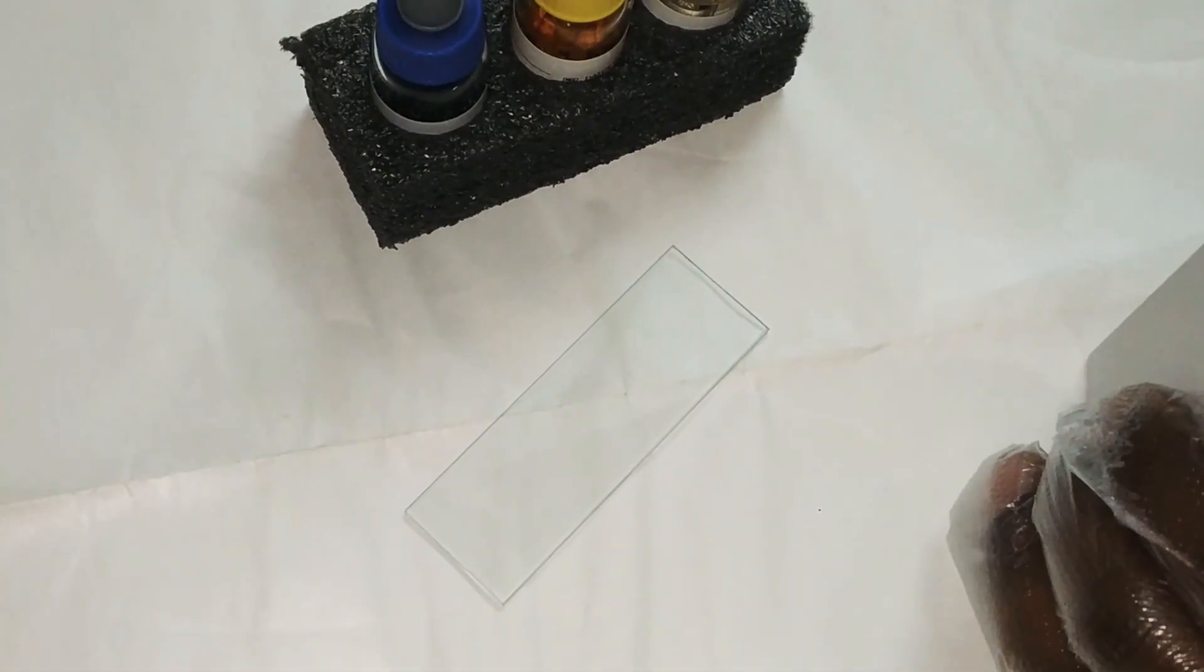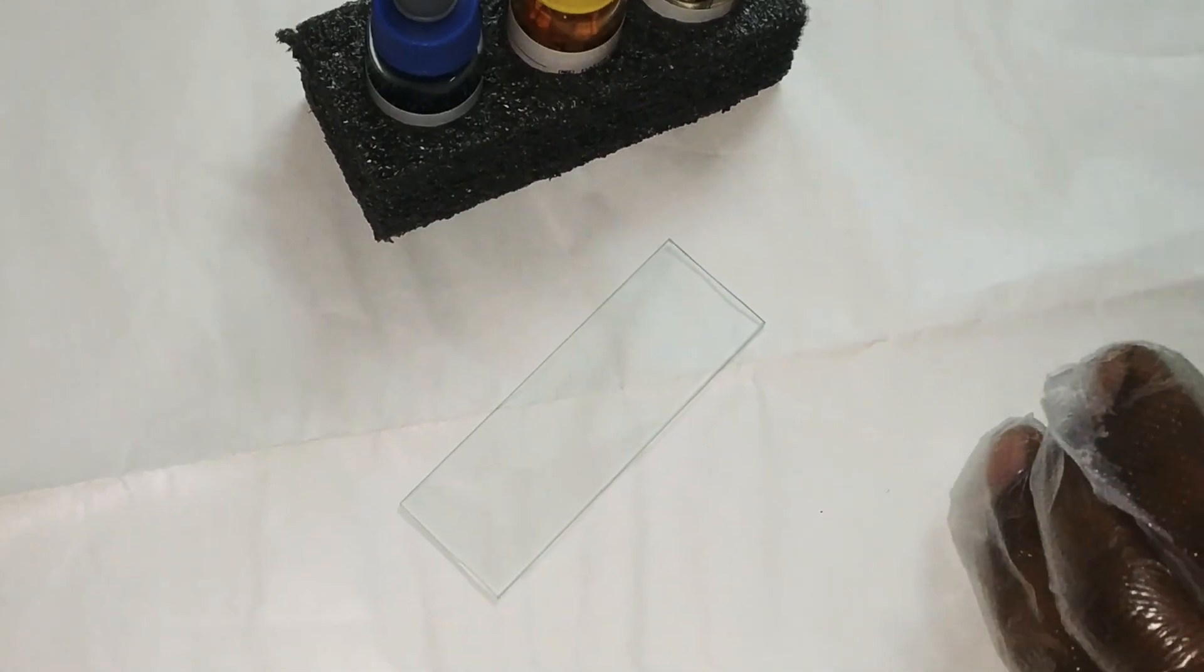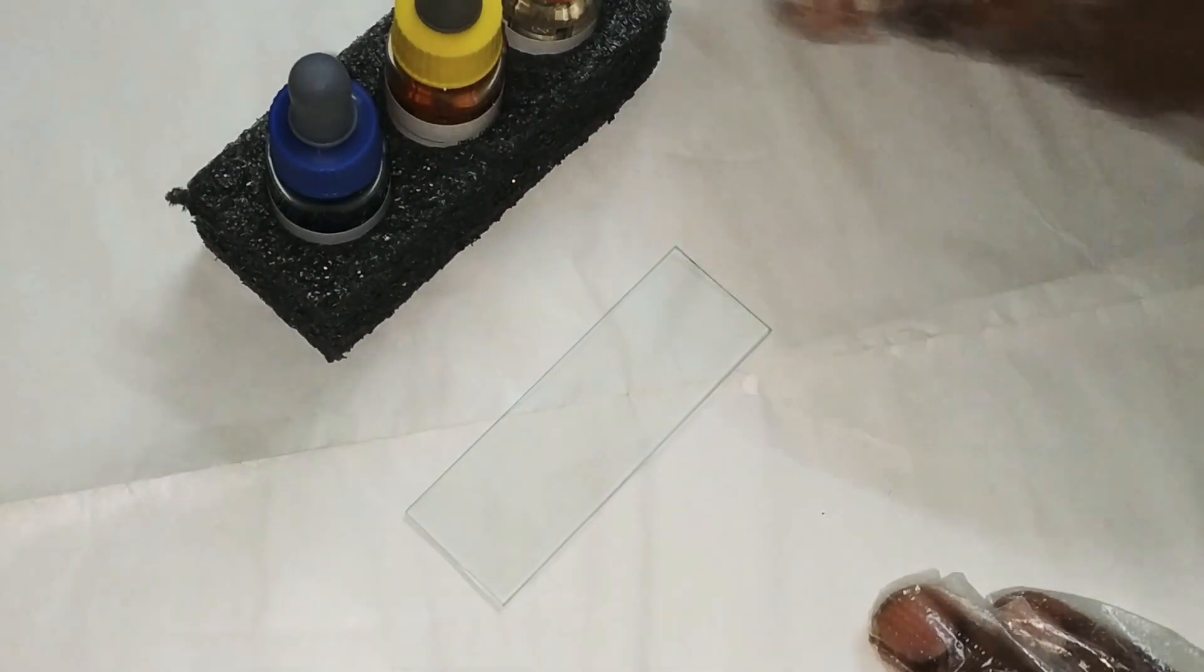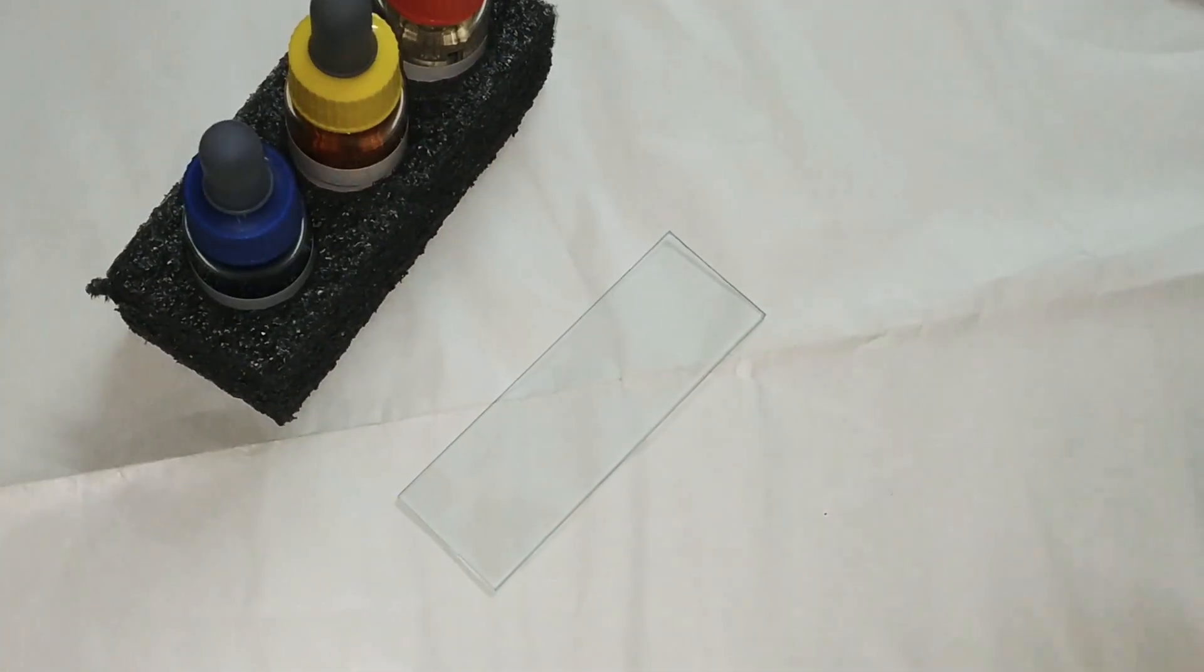Hello everyone, today we are going to perform the blood group test again, but I'm not going to tell the results here. You just observe the tests and comment the blood group in the comment section.